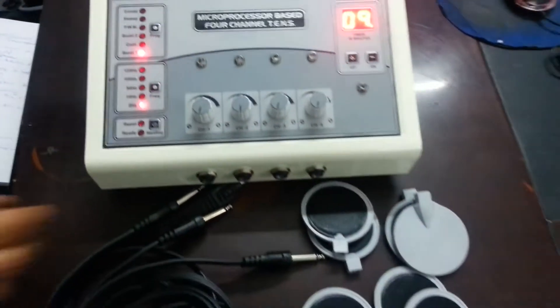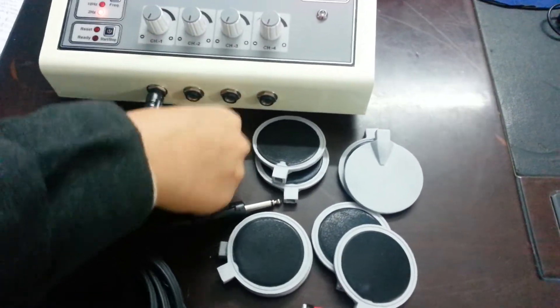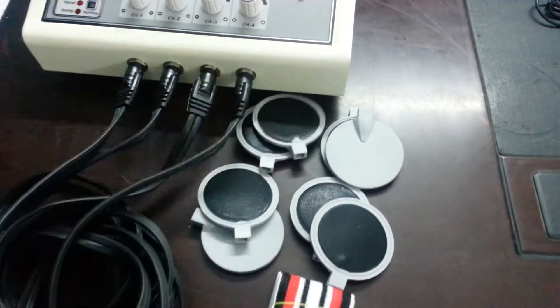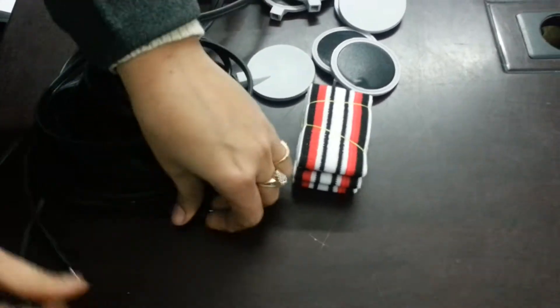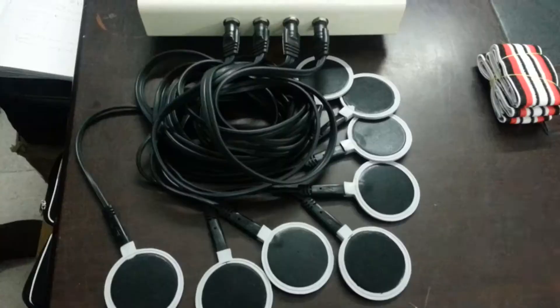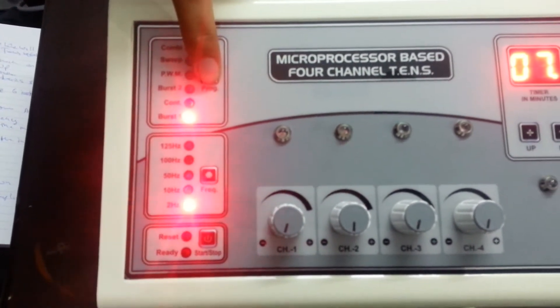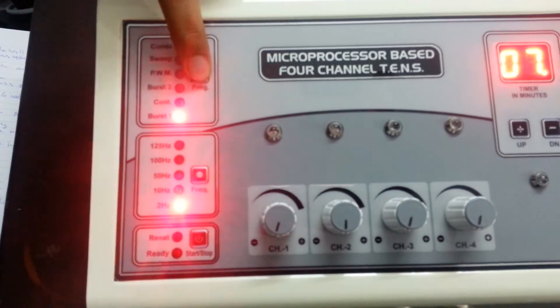Attach the leads and pads. It has 6 inbuilt programs. Set the program as per your need: burst, continuous, sweep, combi 1.